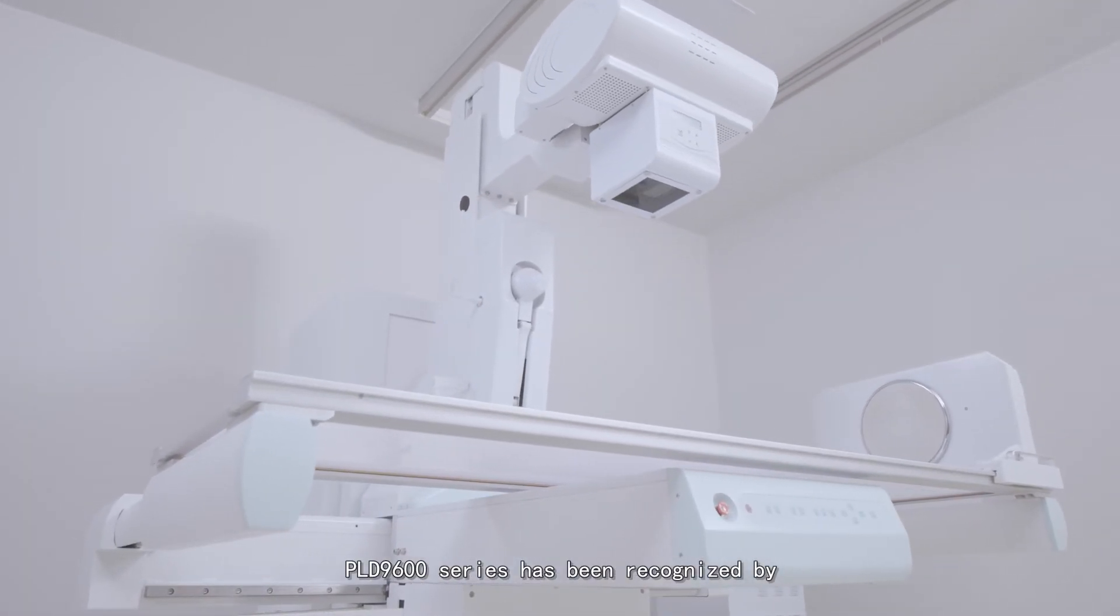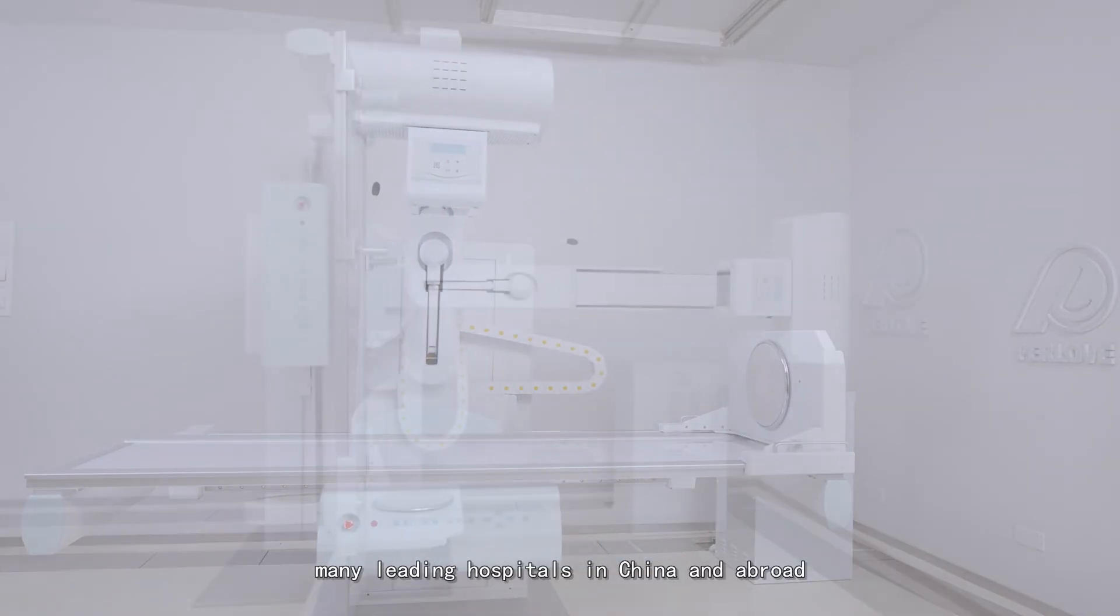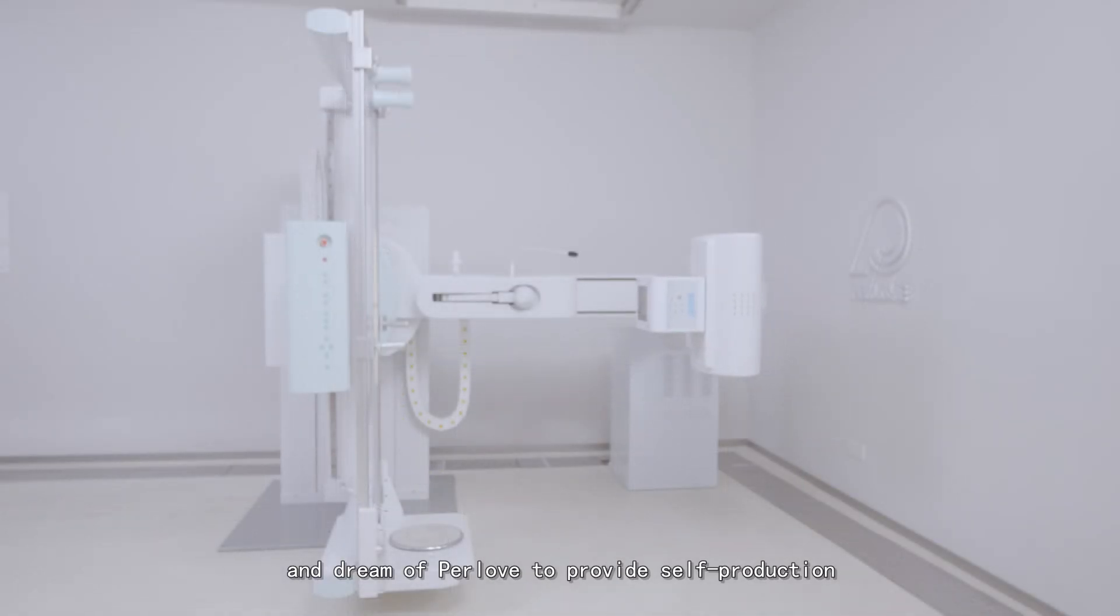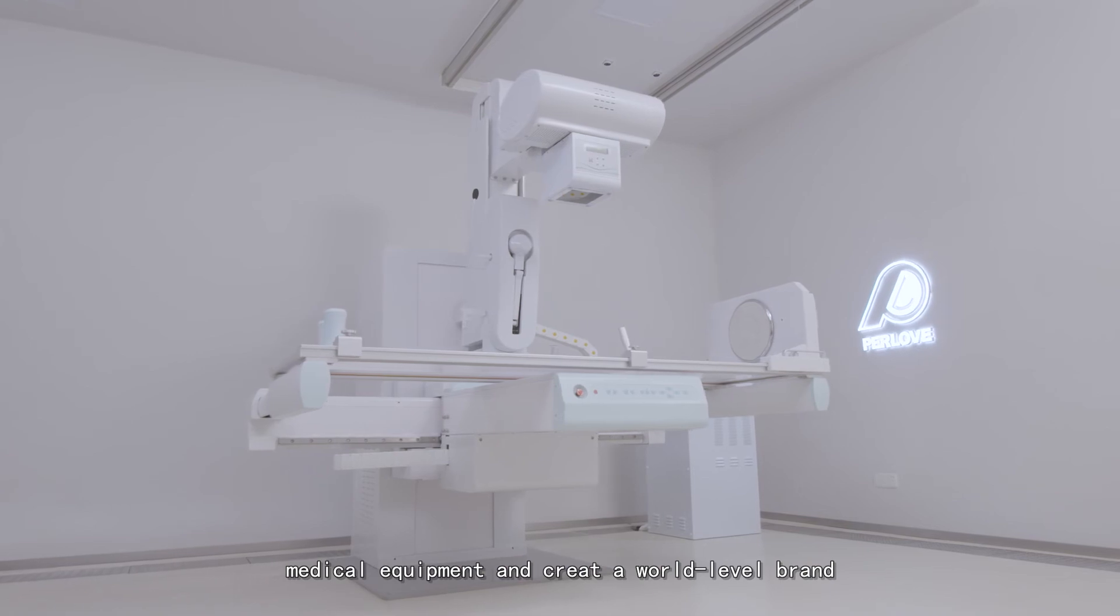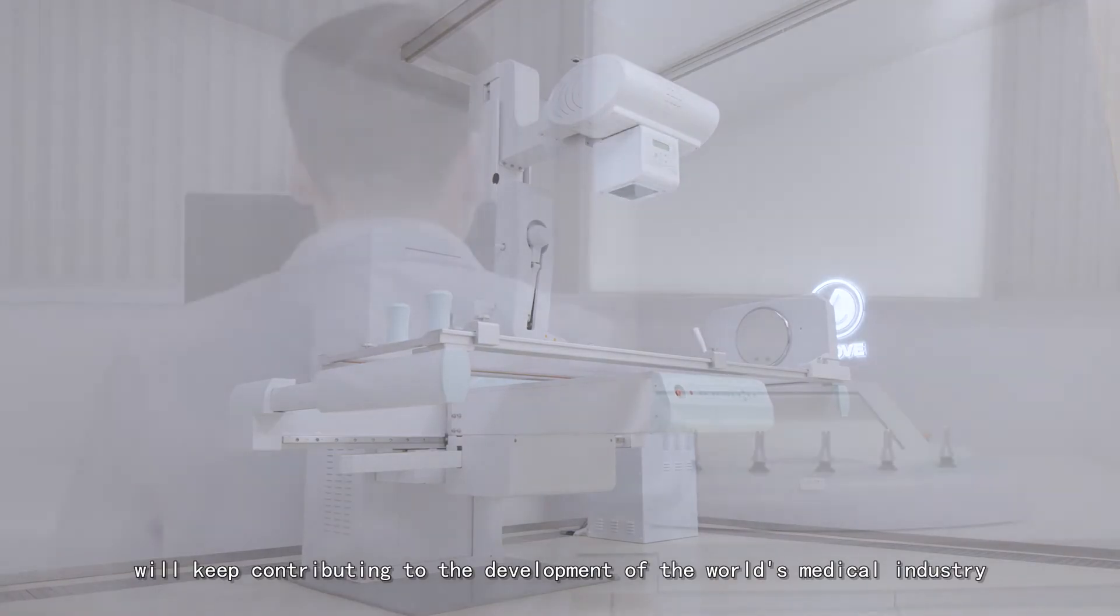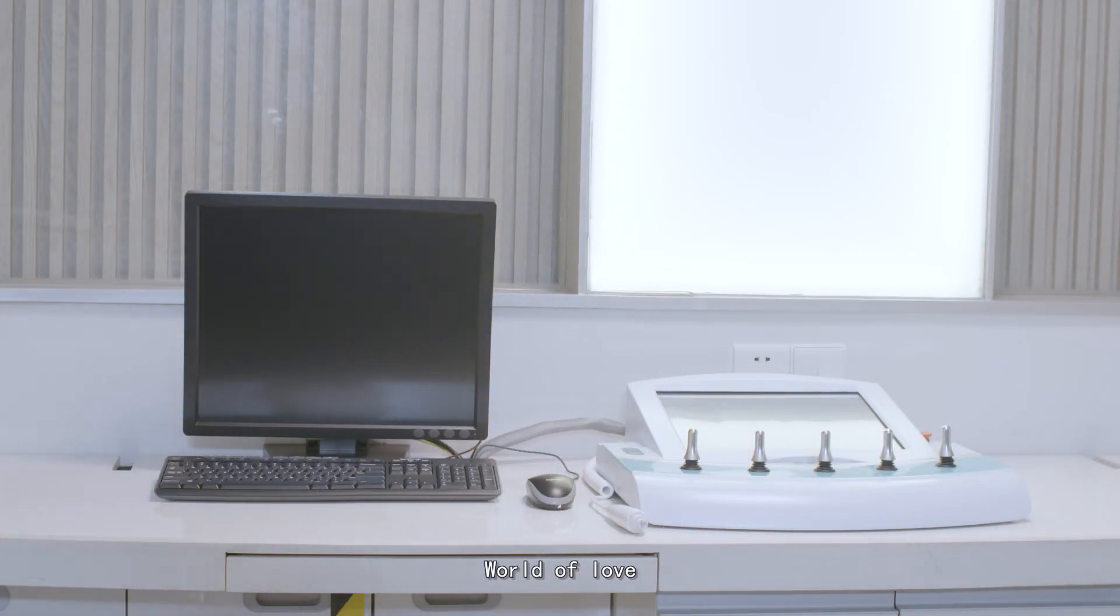The PLD9600 series has been recognized by many leading hospitals in China and abroad. It has always been Perlove's tireless pursuit to provide superior medical equipment and create a world-class brand. Perlove Medical continues contributing to the development of the world's medical industry. Perlove, world of love.